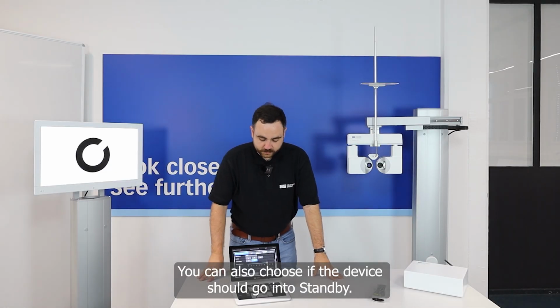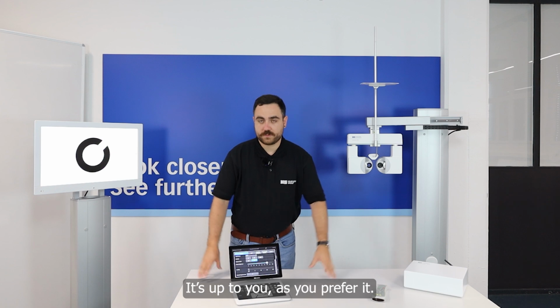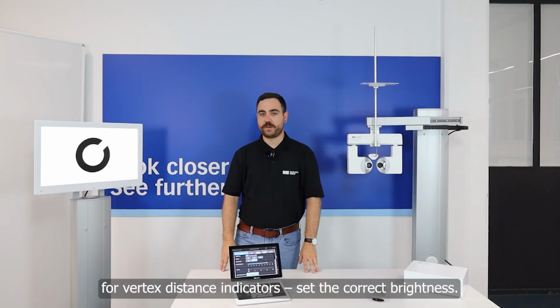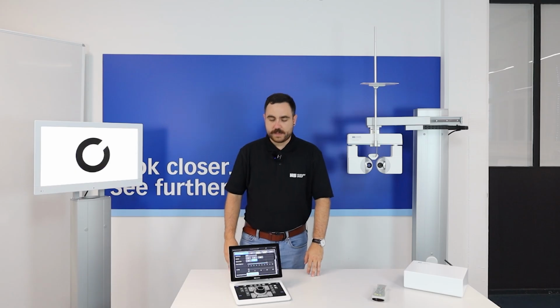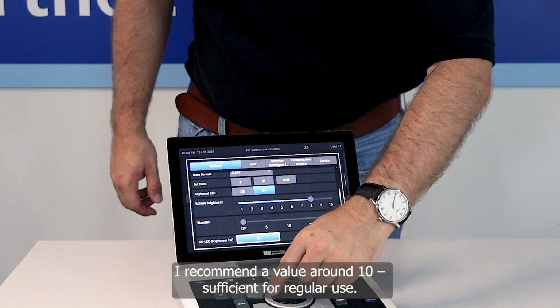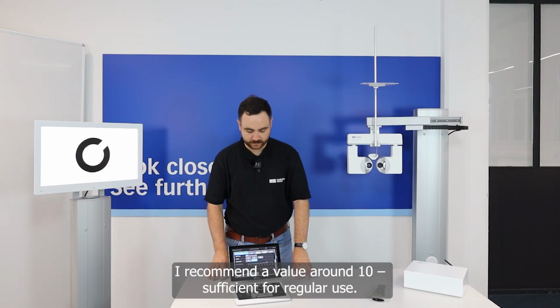You could also choose if the device should go into standby. It's up to you how you prefer it. And for the LEDs for vertex distance, you can define the correct brightness. It has a range from 0 to 100. I recommend a value of 10; that is sufficient.